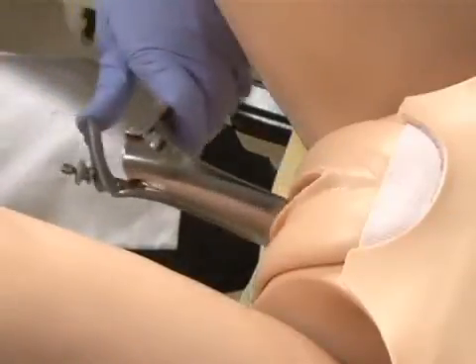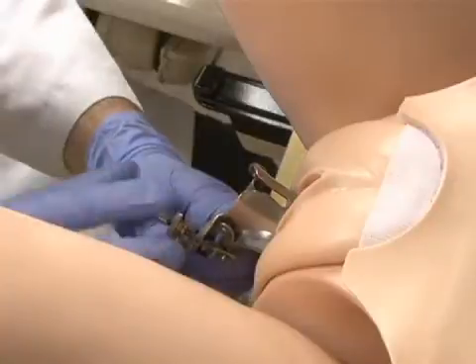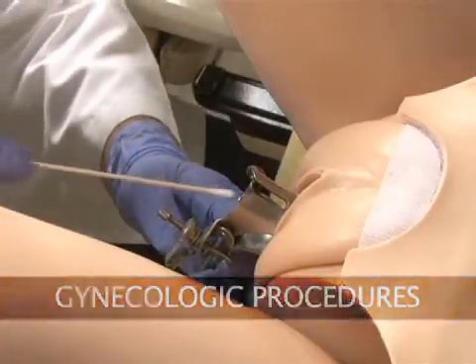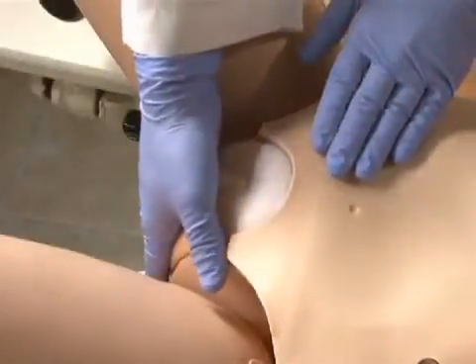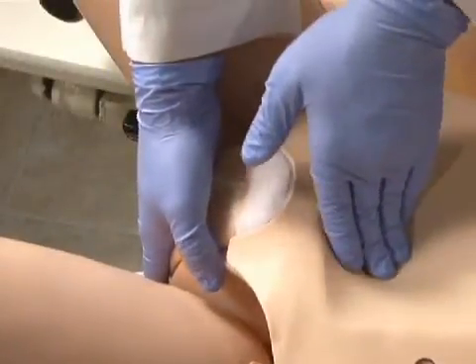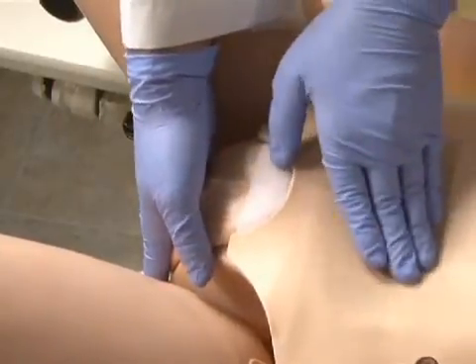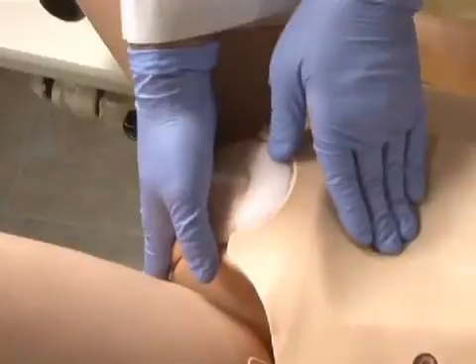SUSI is a perfect simulator to practice gynecologic procedures, such as vaginal douching, speculum insertion, pap smear, bimanual pelvic examination, DNC exercises, placement and removal of an IUD, palpation of normal and pregnant uteri, and inspection of normal and abnormal cervix.